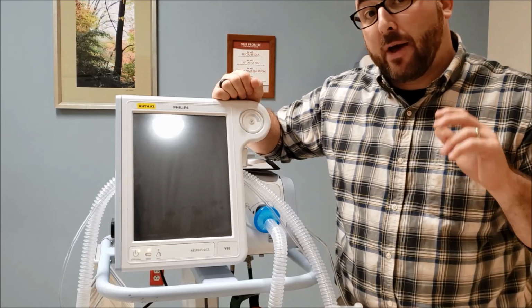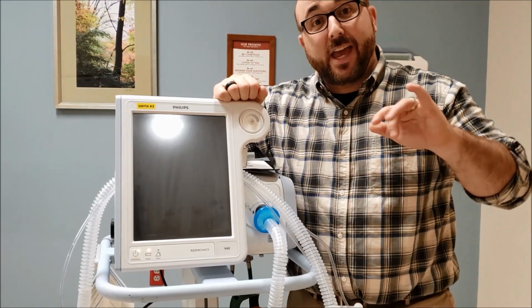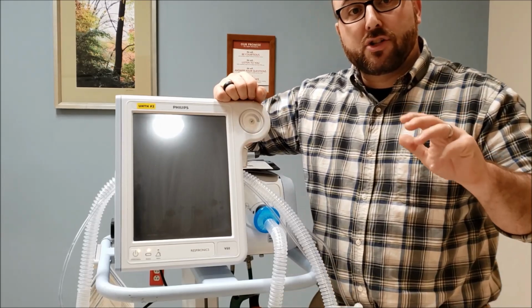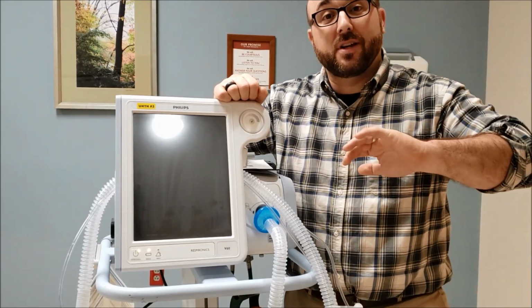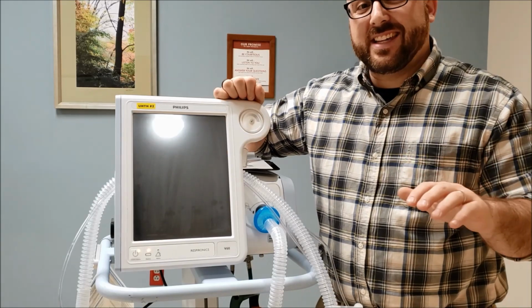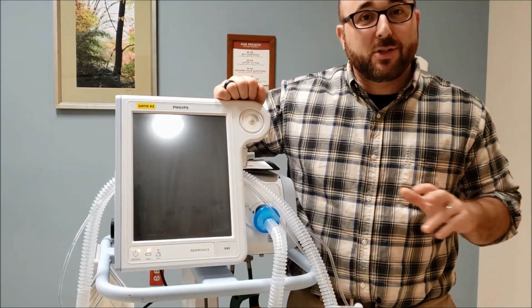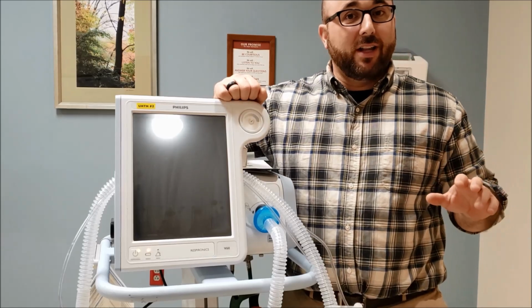Talk a little bit about AVAPS. That is AVAPS, the acronym for it. That's average volume assured pressure support. So it's exactly like it says. You're going to be given an average tidal volume. This is not a tidal volume that you'd see in volume control ventilation.